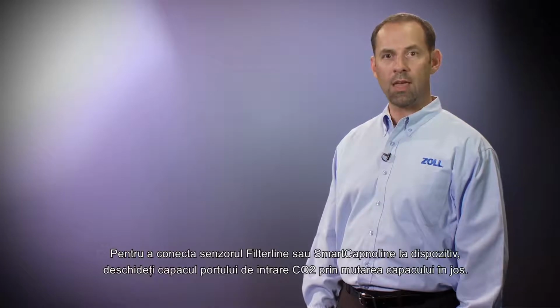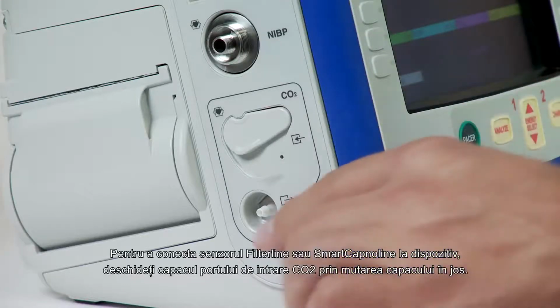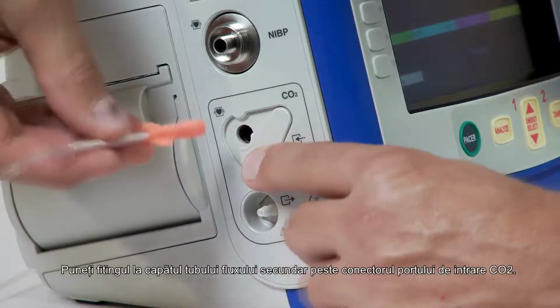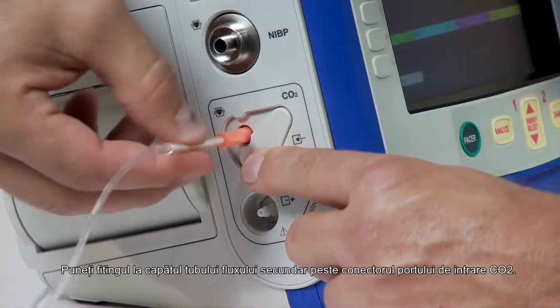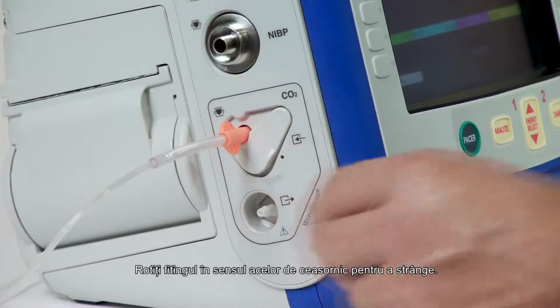To connect the filter line or smart Capno line to the unit, open the CO2 inlet port cover by moving the cover downwards. Put the fitting at the end of the sidestream tubing over the CO2 inlet port connector. Turn the fitting clockwise to tighten.